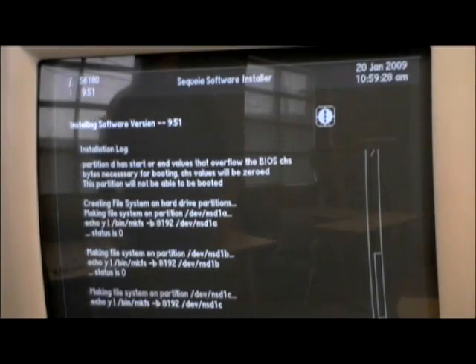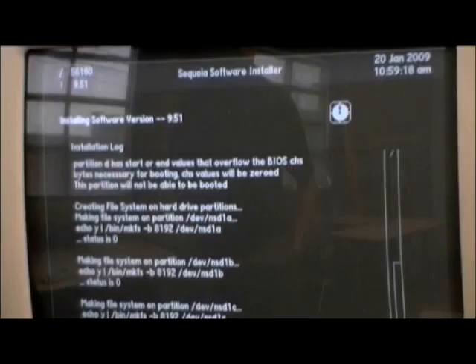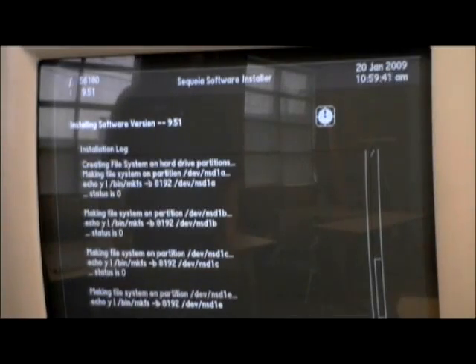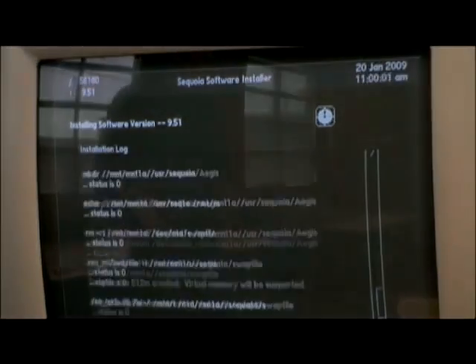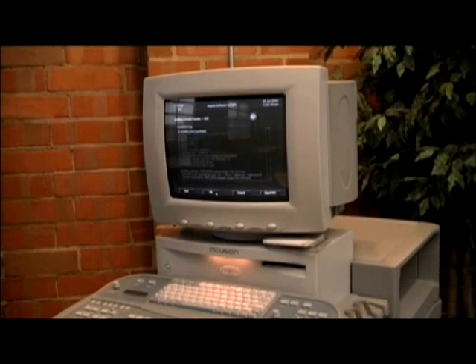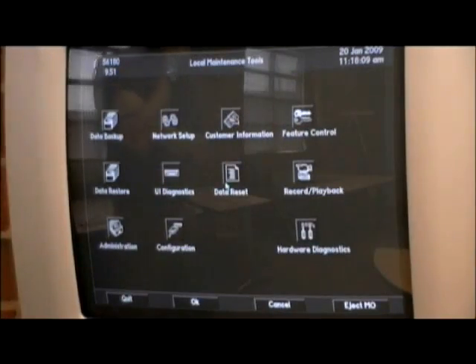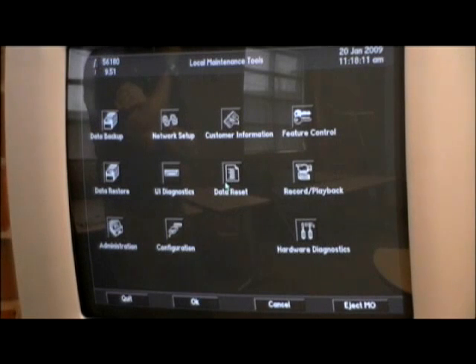Click OK again. This will bring up an installation log, which along with the clock at the top right of your screen will show you your system's progress. This process should take around 10 minutes. Once the installation is complete, press OK to reboot the system. Press OK. This will eject the software disk. The machine will then reboot. Once it has rebooted, it will take you to the system user interface screen, or SUI.